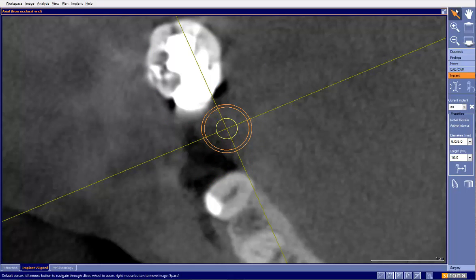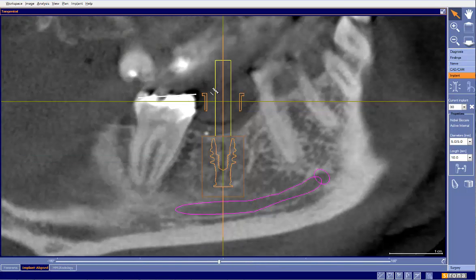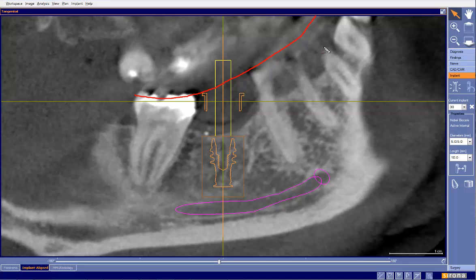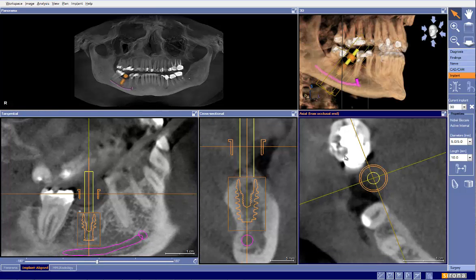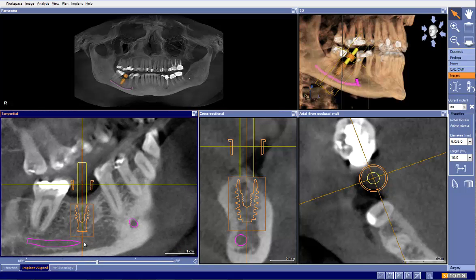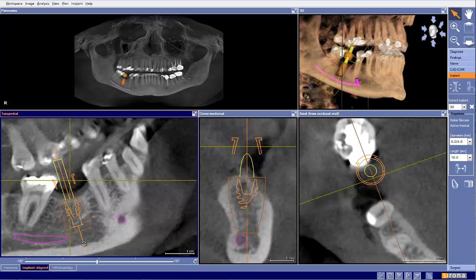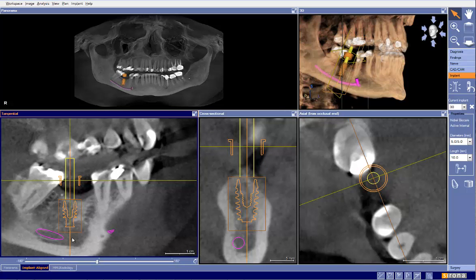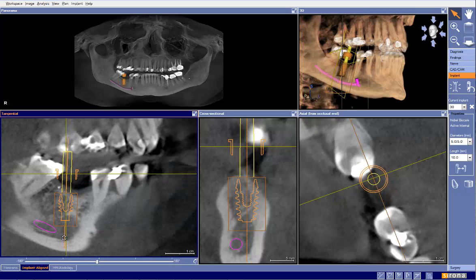Here we can see our occlusal plane goes like so, and we know that's not an ideal scenario. So what I like to do first is go ahead and work on the occlusal table. To fix that I need to move this to the buccal. And also working on the occlusal plane, I know that I need to flatten this out — I'm going to have to over-exaggerate that. You notice how as I tilted that implant, we're starting to have a better occlusal plane. So it needs to be almost like that, if not a little bit more even.